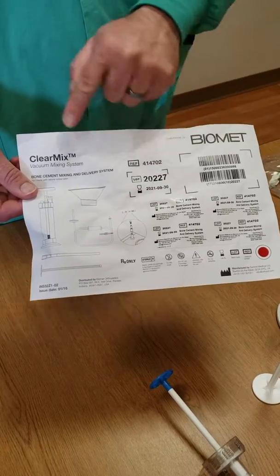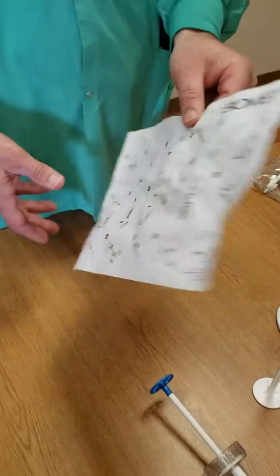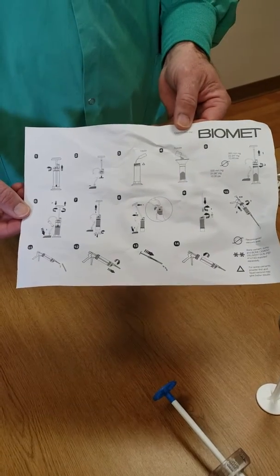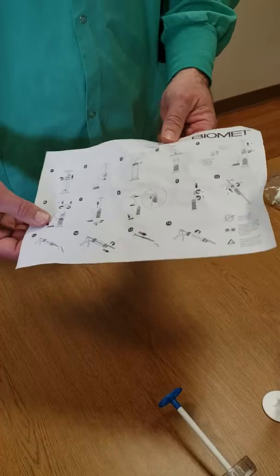Inside the package will come this. It will be on the outside, and inside will be step-by-step directions. You open the package.